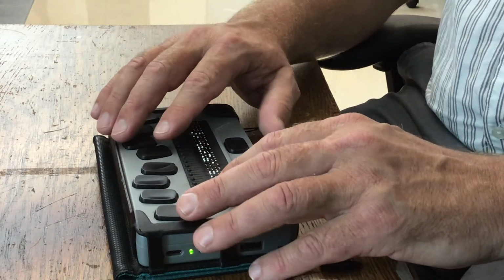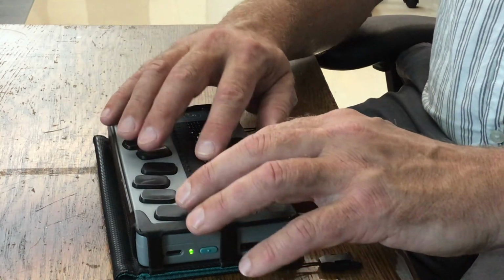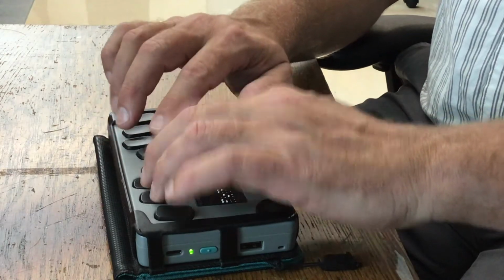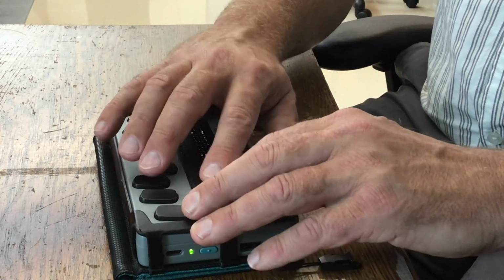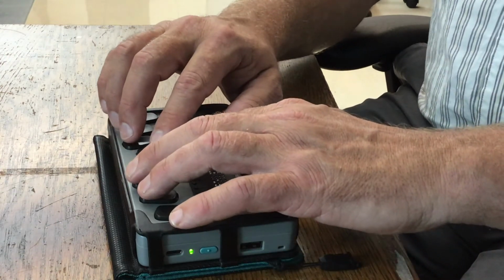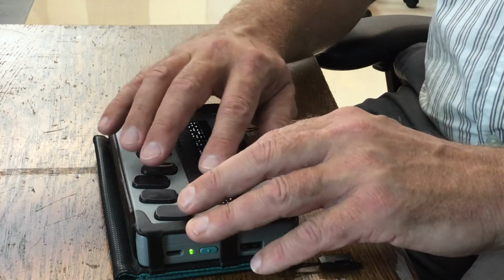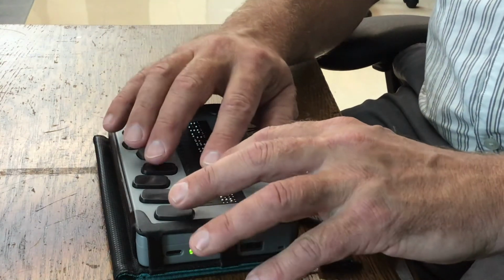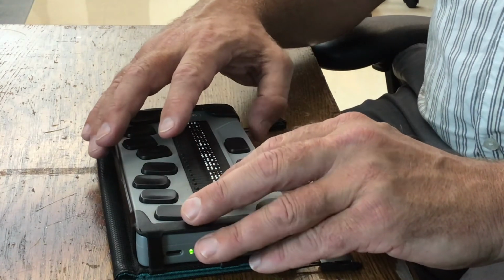I like it better. When I'm done, if I want to do a find for something, let's say I wanted to find calculator, just press F in space, type in calculator, press enter, and it goes right to the calculator. All right. We actually went to calculator in the date and time, so I hit find next, which is N in space, and it goes to using the calculator application. So that's a quick overview of the user guide. So now we'll go back to the main menu.